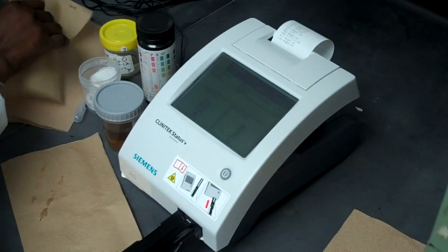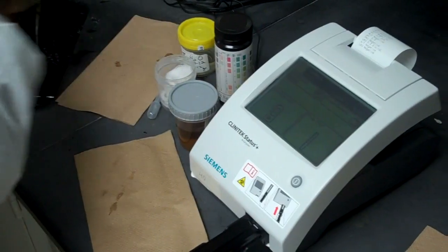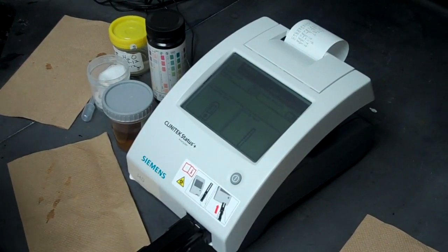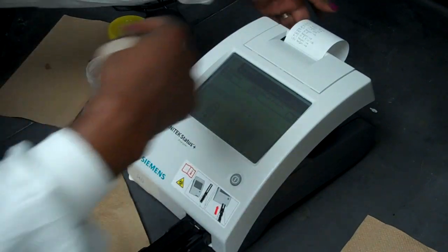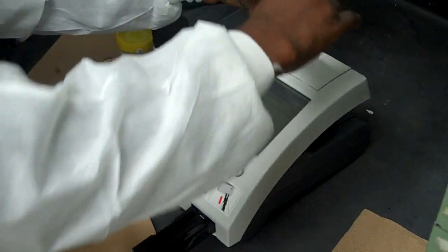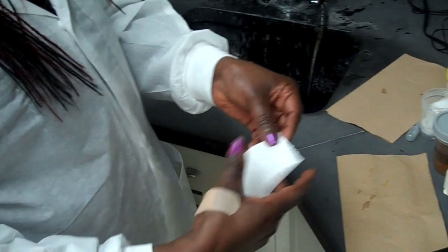You dry your hands. And you take out the strip. Your test results. Here are your test results.